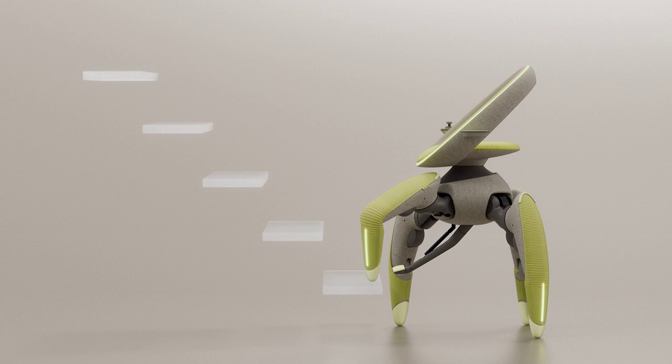Toyota's WalkMe Robot Chair, a crab-like companion for enhanced mobility. Toyota has unveiled a fascinating prototype at the Japan Mobility Show 2025.